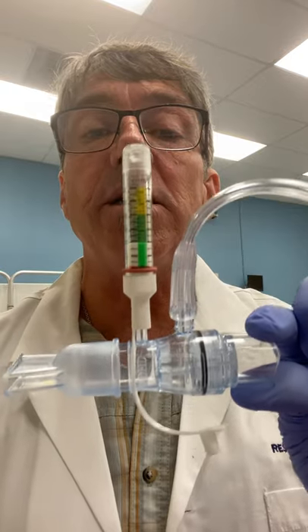So that is the EZ-PAP device, with and without a small volume nebulizer.